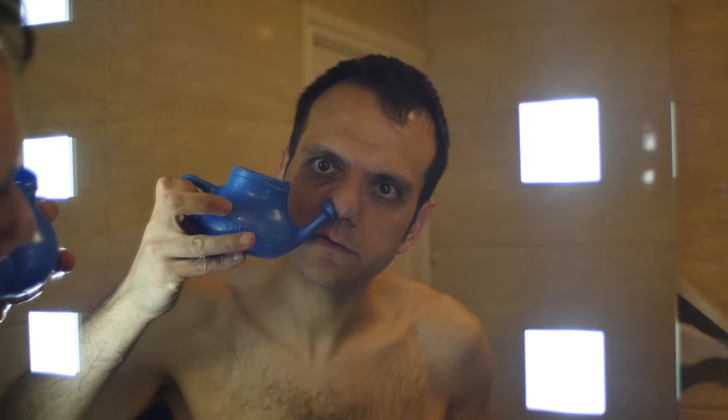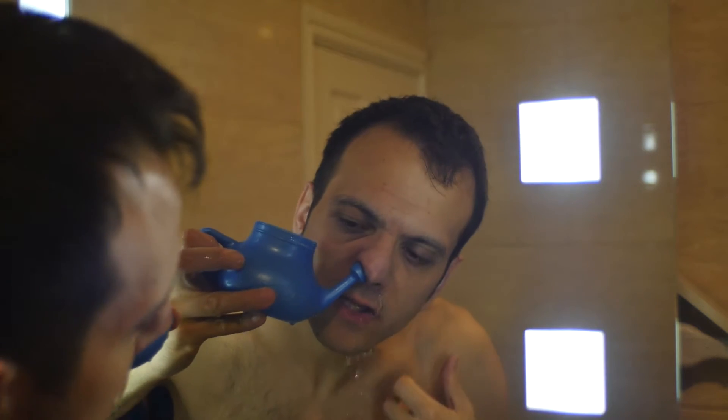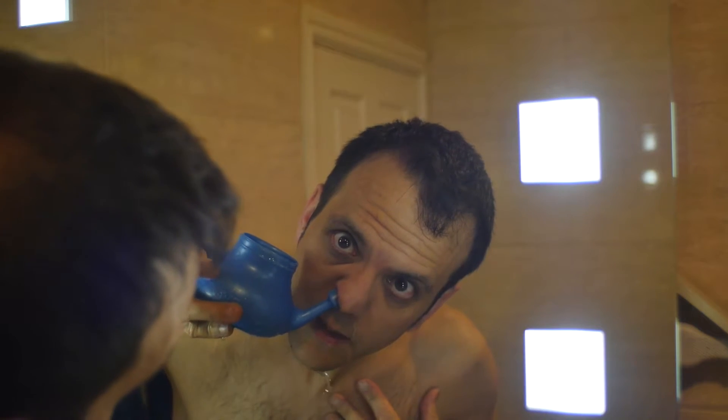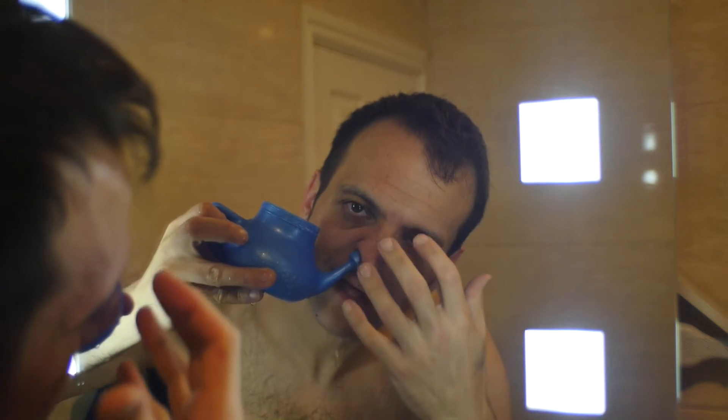I've got this toothbrush, I'm just going to stir it up — watch this, this is great. So you actually put this nozzle hole first — I'm going to try this — you put it in one nostril, tip your head. Can you see that? It's actually coming out the other one. I'll try not to drown myself. So if you get it right, it's actually coming inside and it's filling your sinuses. You can tip your head back as much as you like.